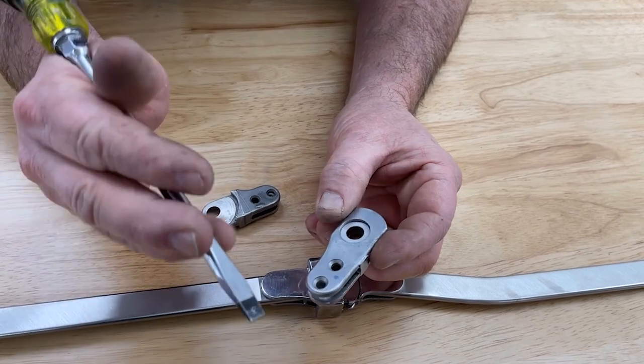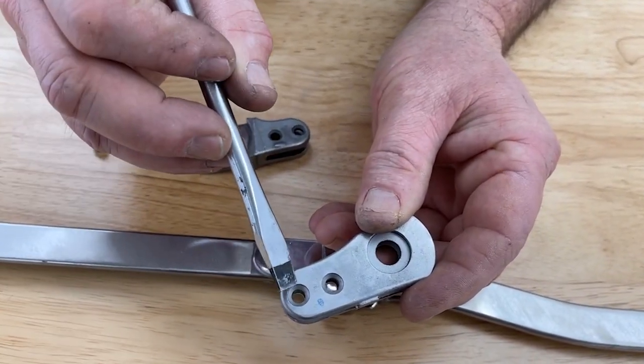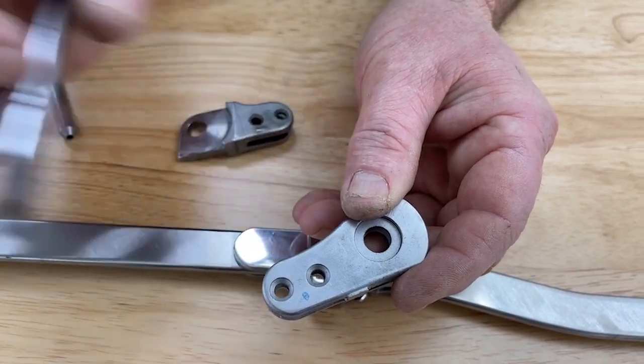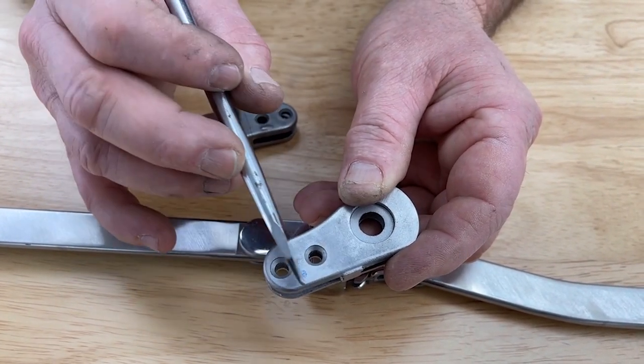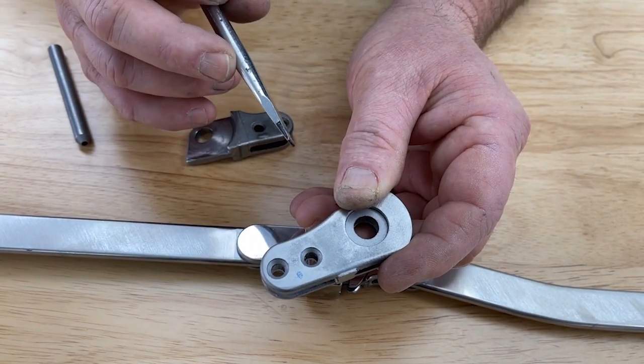You can see that I've drawn a little circle here in between the two rivets. These are 3/16th rivets, and this is going to be a 3/16th ball. I drilled it on the anterior side of the joint. I didn't want these three holes to be in a line because that'll weaken the upper bar.